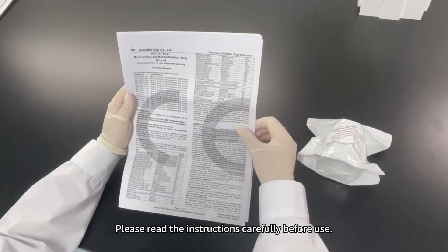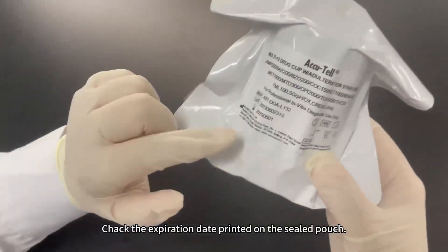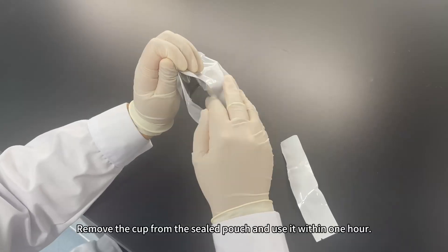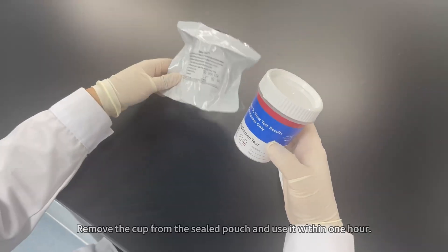Please read the instructions carefully before use. Check the expiration date printed on the sealed pouch. Remove the cup from the sealed pouch and use it within one hour.